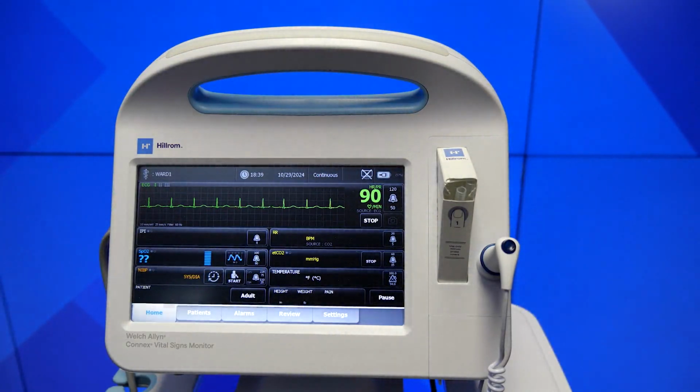The saved waveform icon for an alarm condition appears red in the Review table, indicating a high-priority alarm. Alarm waveforms capture the 7 seconds before, as well as the 7 seconds after an alarm event. During the 7-second post-alarm save time, you cannot modify any settings such as leads, filter, gain, and pacemaker detection.